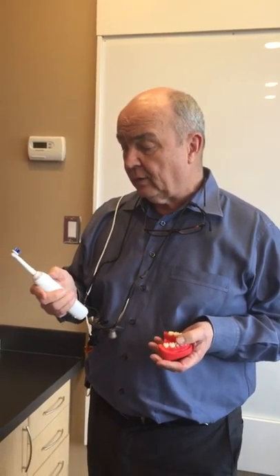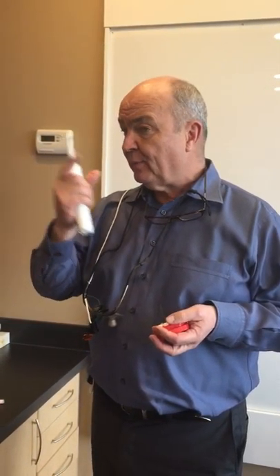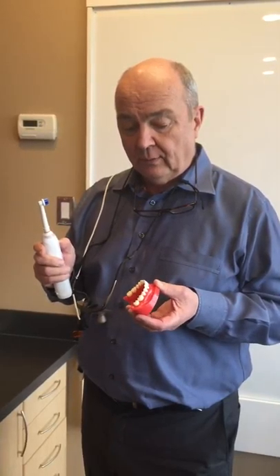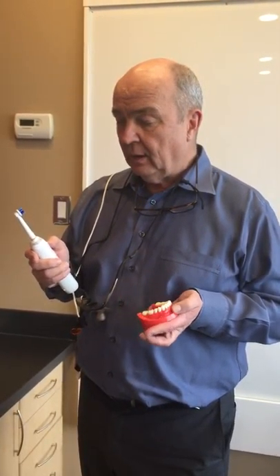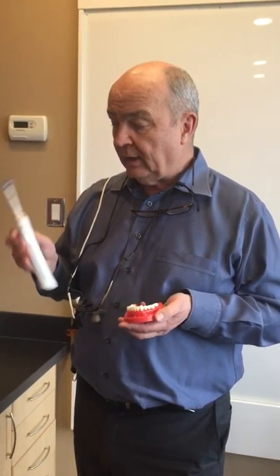The other cool thing about it is that it comes with a holder for your cell phone — I'll do another vlog on that and show you guys next time. But it actually watches you brushing your teeth and maps out where you've been and tells you where you've missed, which is really cool for maybe some of the younger folk who keep missing certain areas.